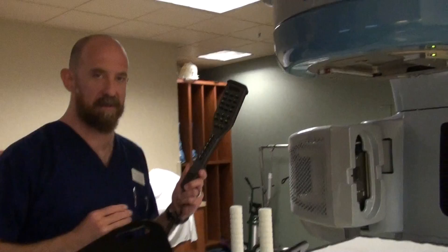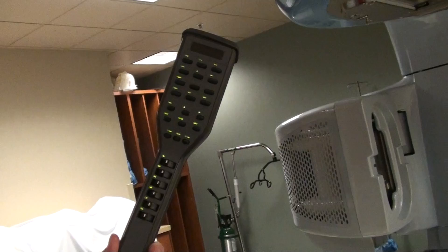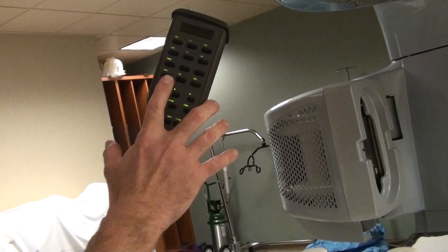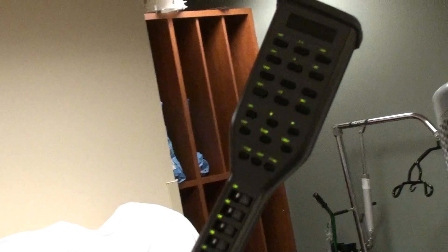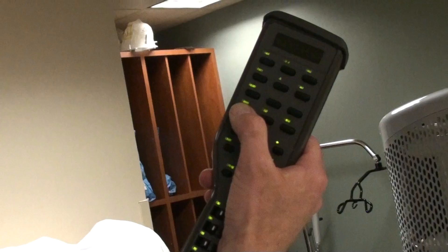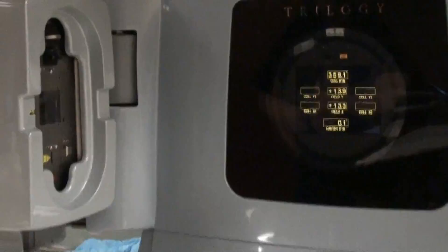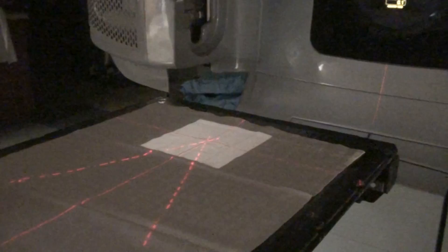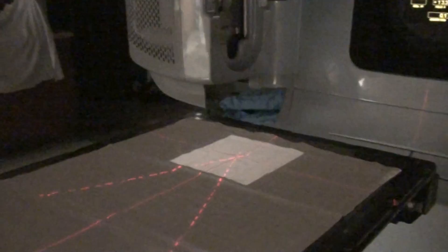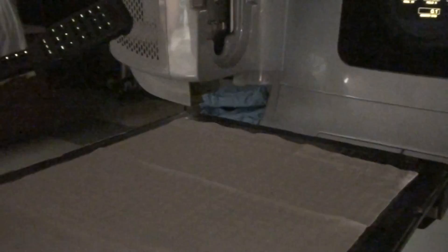We have the pendant, which we use to actually control the machine. There are several buttons you need to know about first: room light and SSD light. Those are the two buttons you need to know intimately on a Varian unit. When I first come in the room and I'm getting a patient on the table, I turn the room light off and then also turn the SSD light off immediately. When you turn the room light off, the field light comes on and the SSD light comes on — you don't need that SSD light until later. So get into the habit of hitting room then SSD every time, so you can see your crosshair to line your patient up. Then when you need the SSD later, you turn it back on.